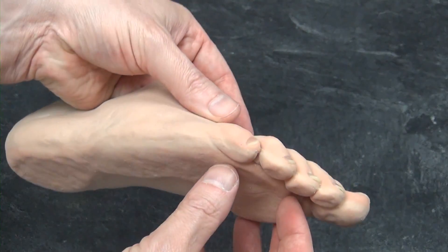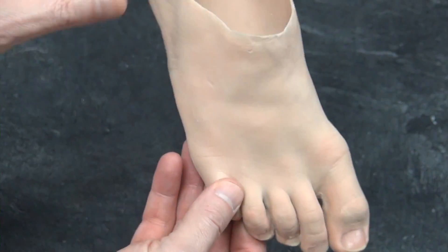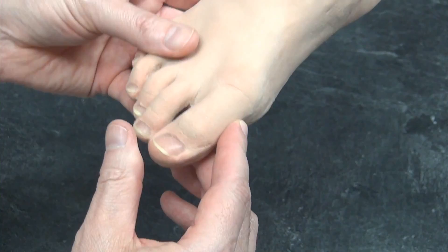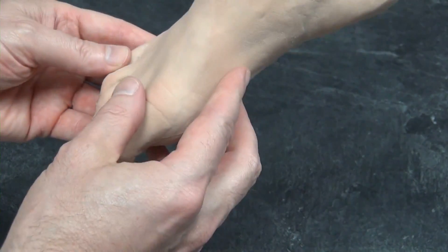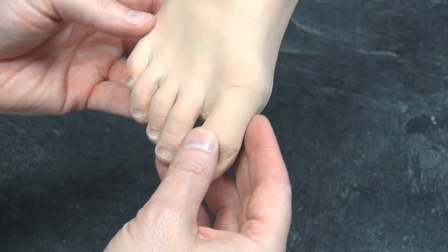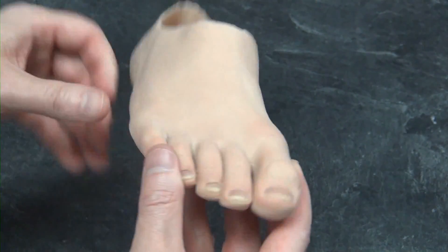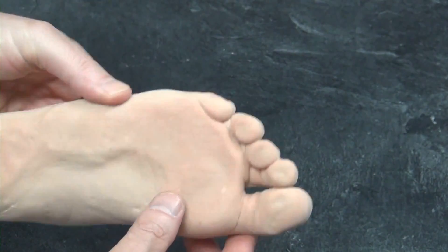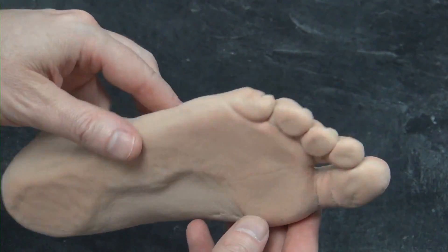In this case it has a life cast, so it has all kinds of texture and detail. All these pieces are handmade — they're either custom sculpted or made from donor parts like a life cast in order to create a degree of realism. They're custom colored to match the patient, with a lot of built-in color in this piece — hopefully the lighting is good enough so you can see that.